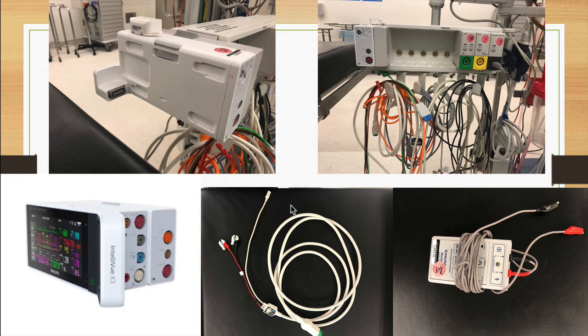And just like your iPhone, when you take it from a vertical to a horizontal, there's an accelerometer inside that detects when you've changed orientation. This machine here can also detect when the thumb is making movement from stimulation of whatever nerve you have it attached to, and it will register that both as a train of 4 in terms of just gross number of twitches, but also a train of 4 ratio.